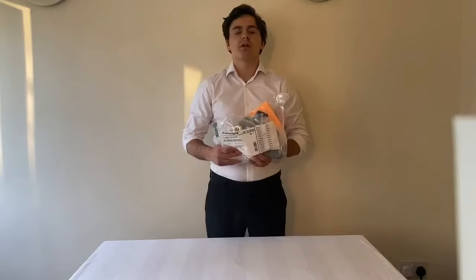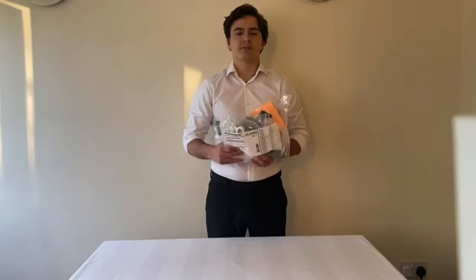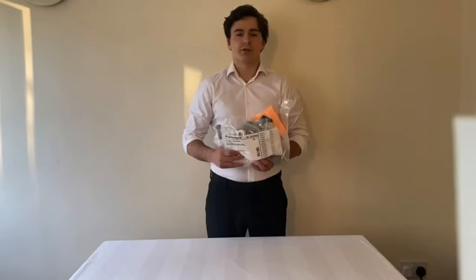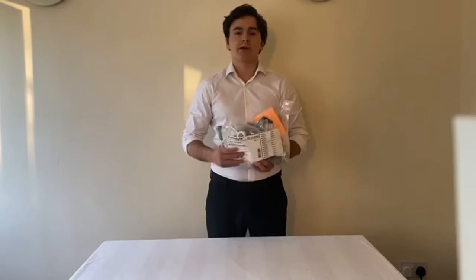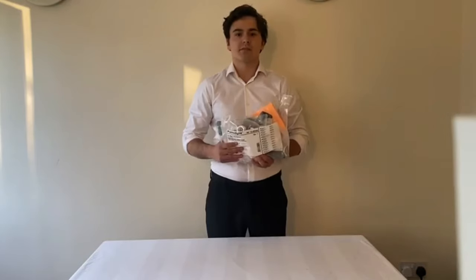This is the user guide for the Pulmodyne O2 Max Trio CPAP kit, distributed by VentMed to the UK. In this video we will cover the use of the kit during the coronavirus outbreak, when it can be used, all of the key features and how they function including the hospital-grade oronasal mask that comes with the kit, and finally setting up the kit once it is out of the bag.